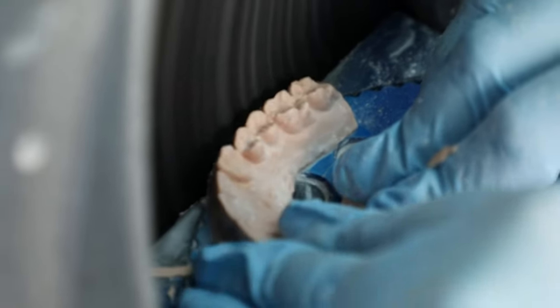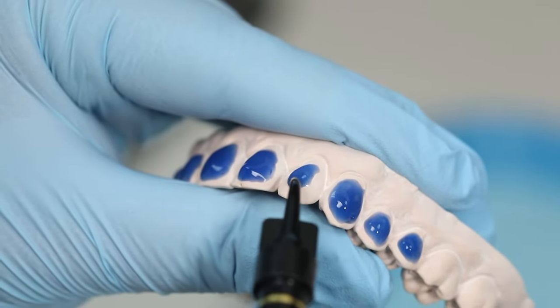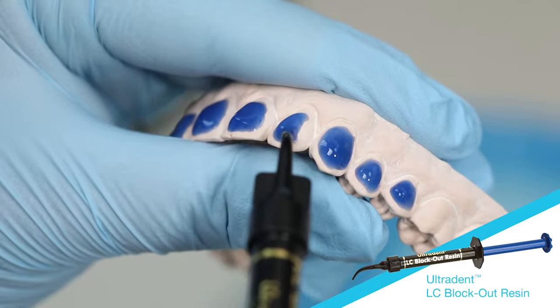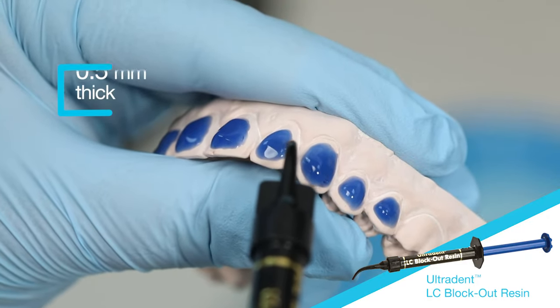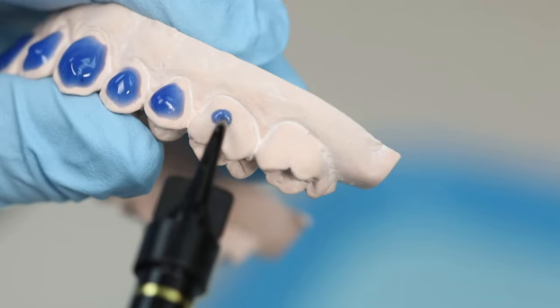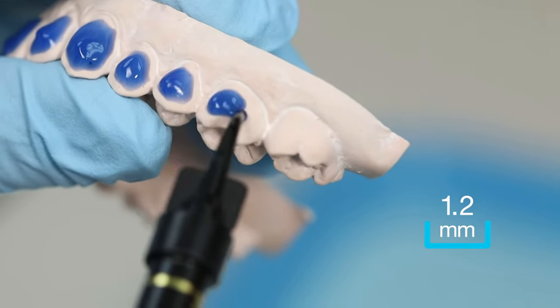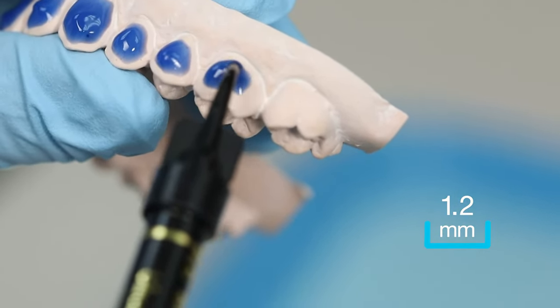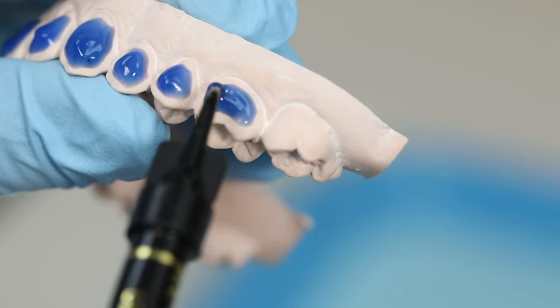Allow model to dry 2 hours. For reservoir spaces, apply Ultradent LC Blockout resin approximately 0.5 mm thick onto the labial surfaces. Stay about 1.2 mm from gingival line. Do not extend onto incisal edges or occlusal surfaces.